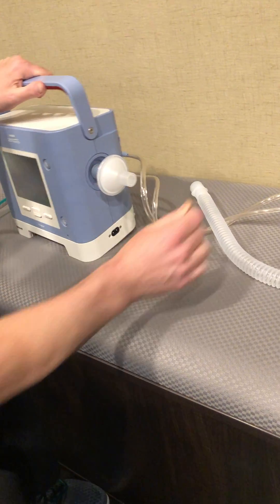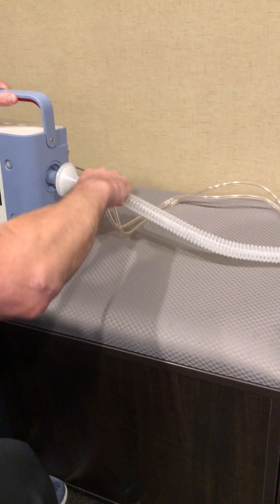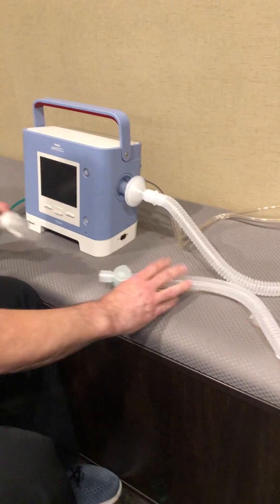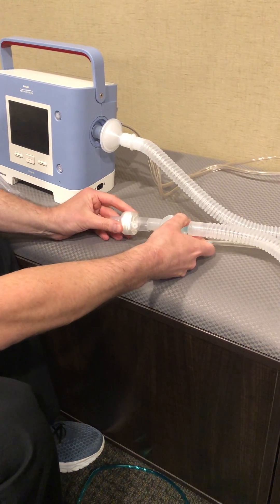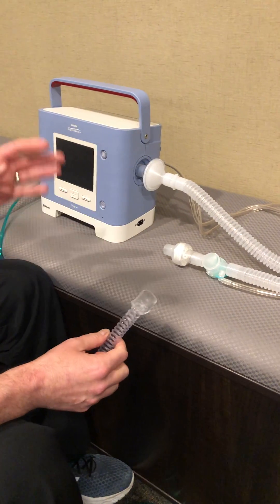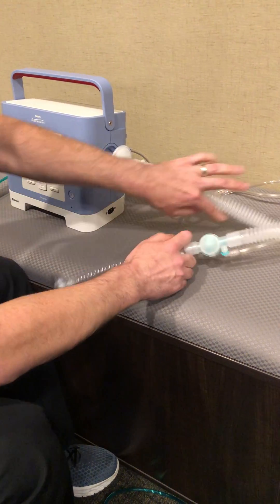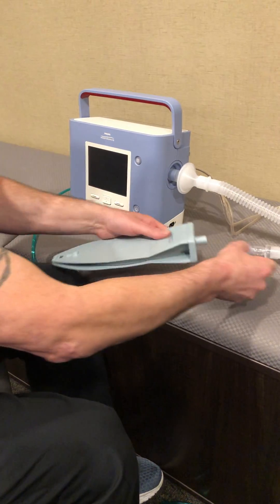We'll go ahead and set up our bacteria filter in the circuit. At the end where the exhalation valve is, we'll set up an HME and a trach adapter, because we're doing an invasive setup with an active circuit.